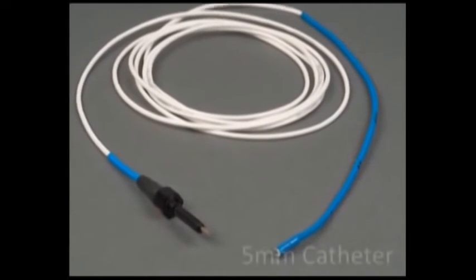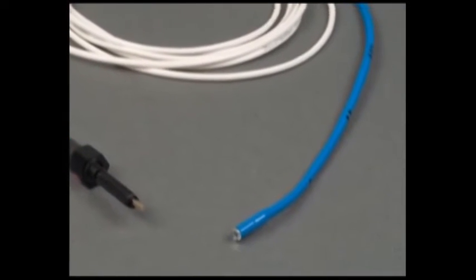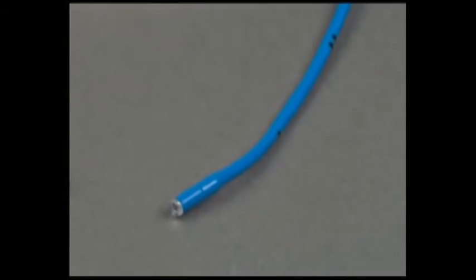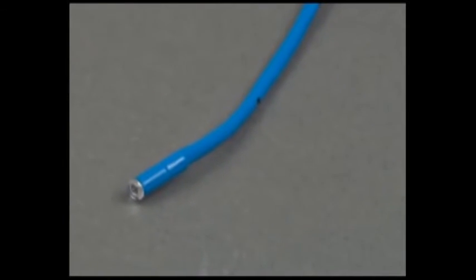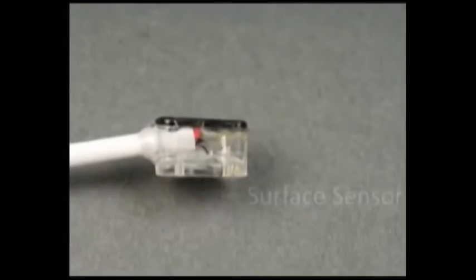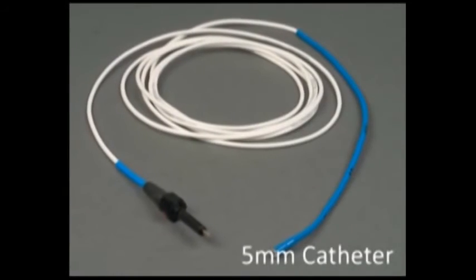Last, the 5mm catheter sensor is used for measuring tissues internally during open or endoscopic surgical procedures, such as during aortic aneurysm, stenting, or repair. The 5mm sensor may also be placed rectally to monitor colonic perfusion, such as during vascular surgery. In review, there are multiple T-Stat sensors, each intended for a different clinical application.